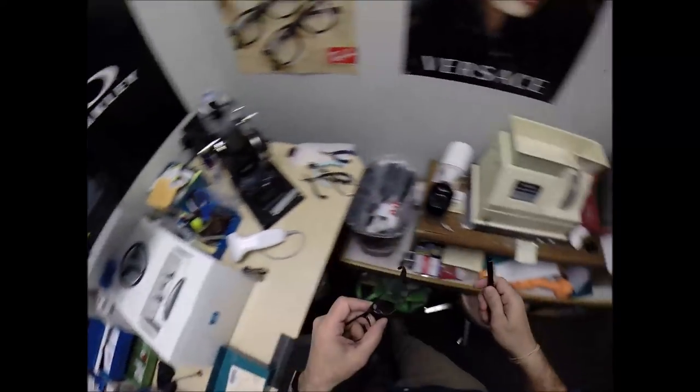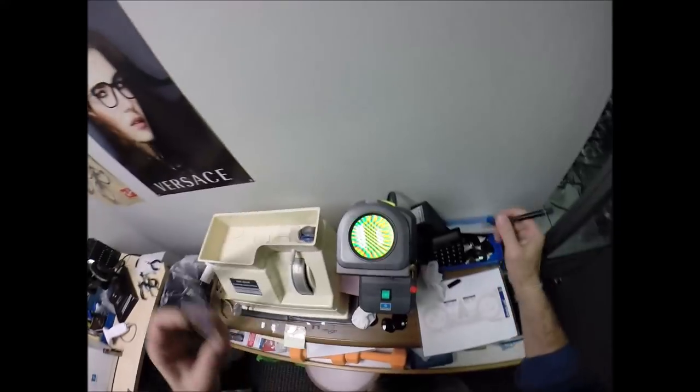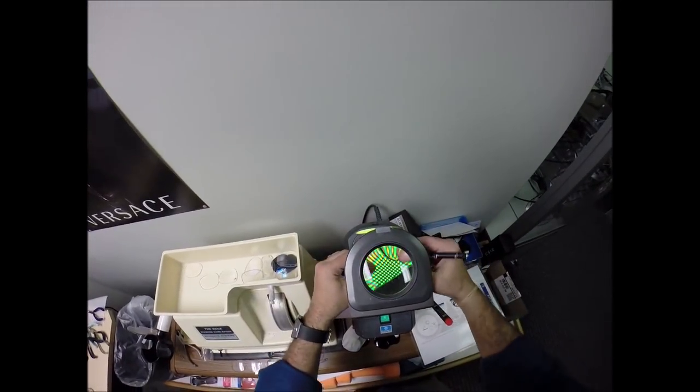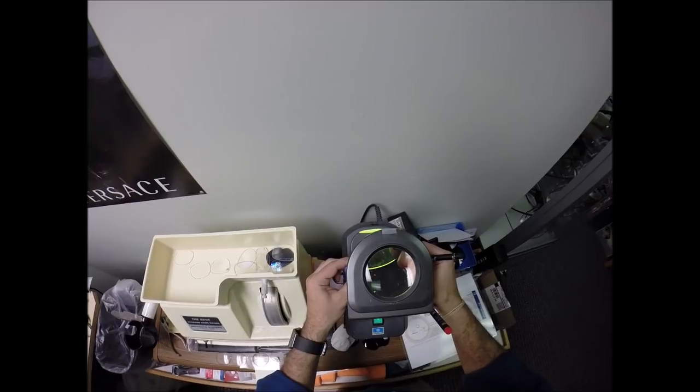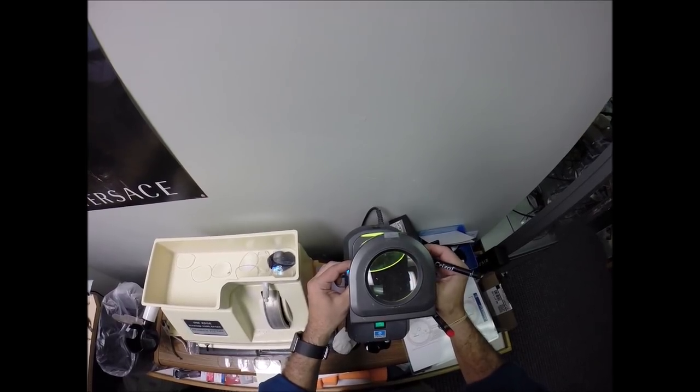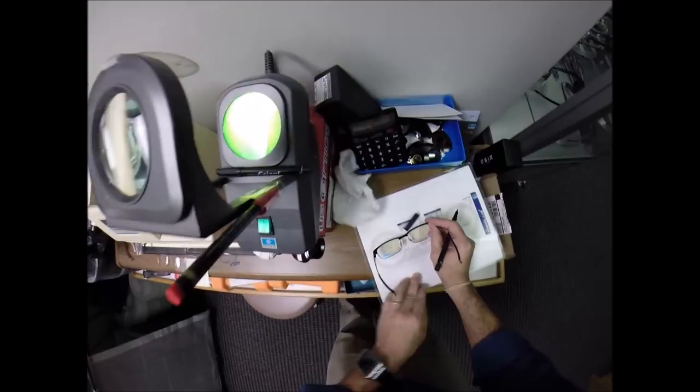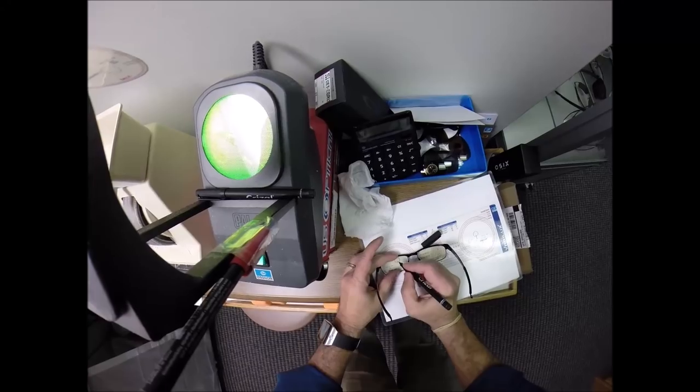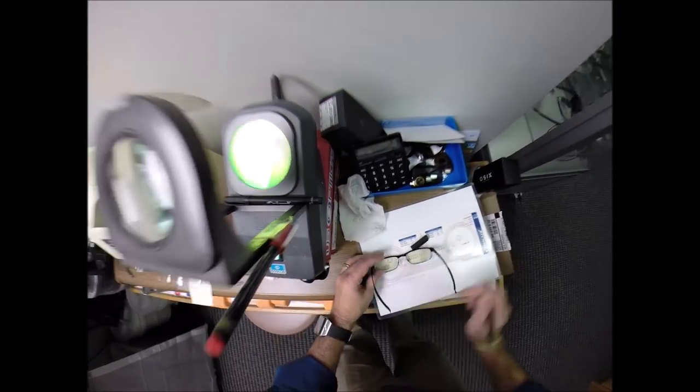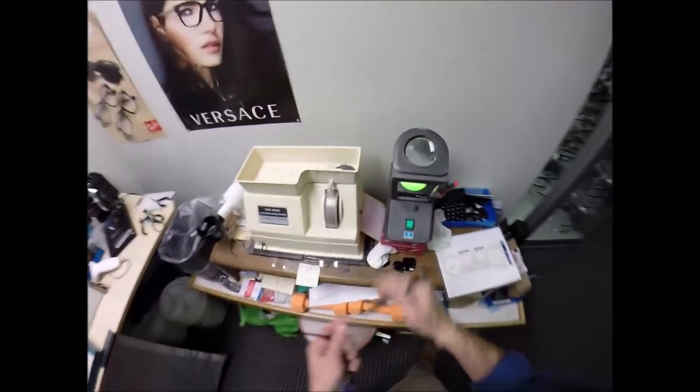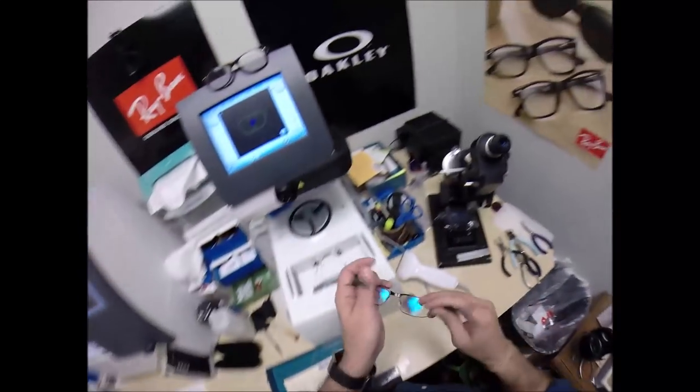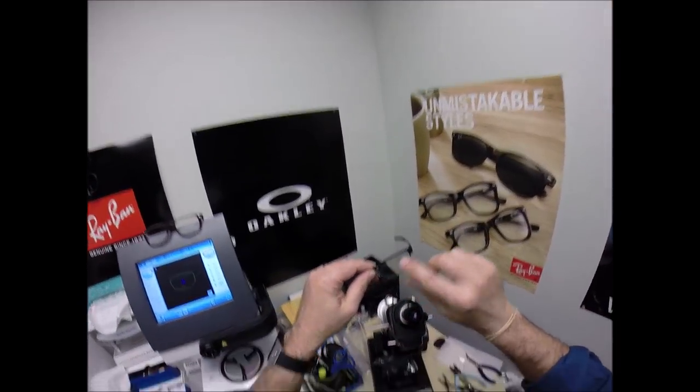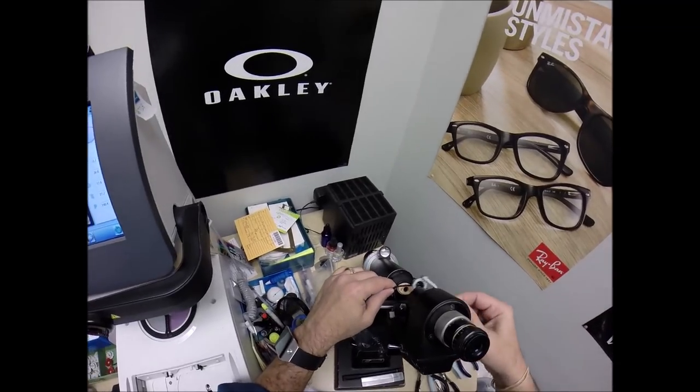So now the fun part. Let's come back down here. We're going to darken that one. And once that is on there, I'm going to line up those two dots and put one right there in the center. I'm going to turn that off now. Come back down here to the Marco Lensometer. Place that end just below the reticle. And I'm reading.